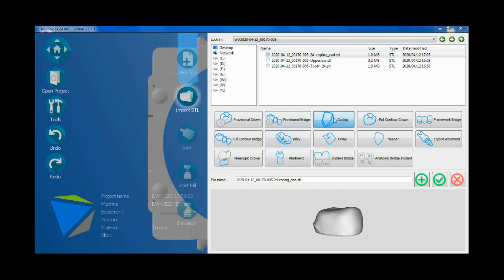Choose the type of the job and click on the check mark. If you want to add more jobs to this blank, click on plus option.